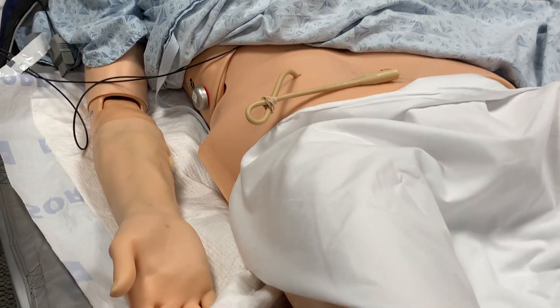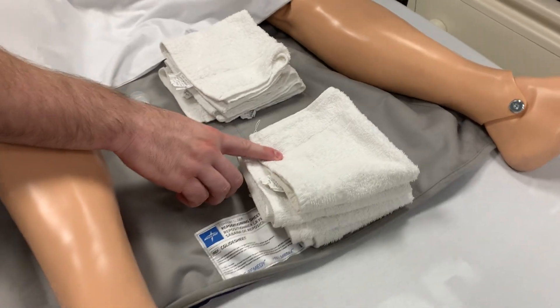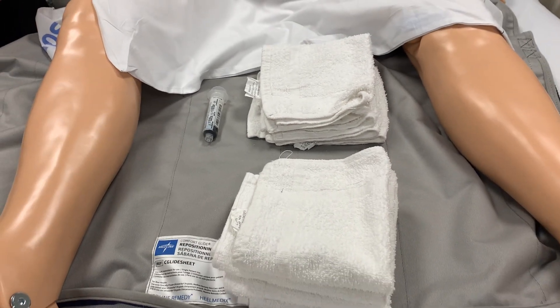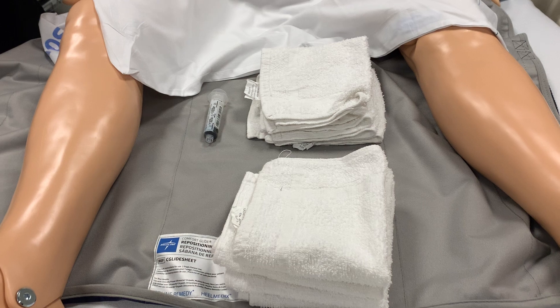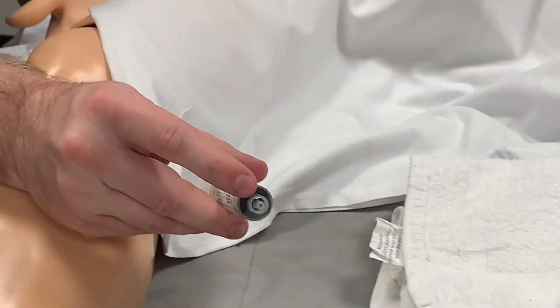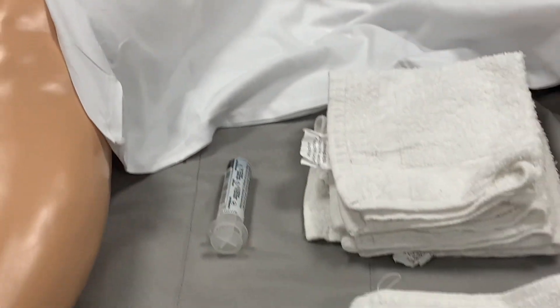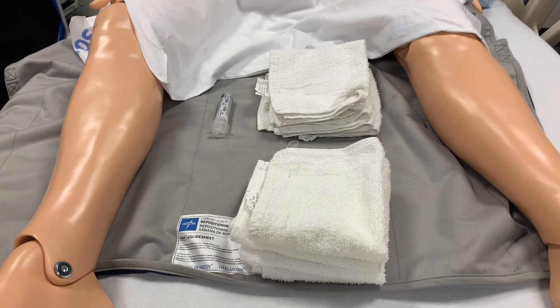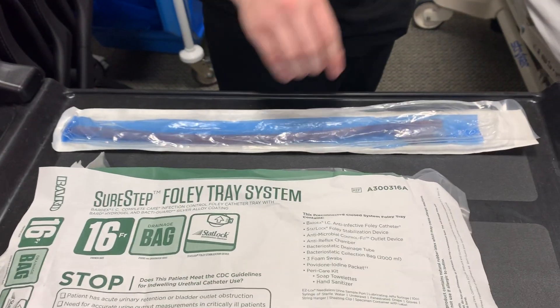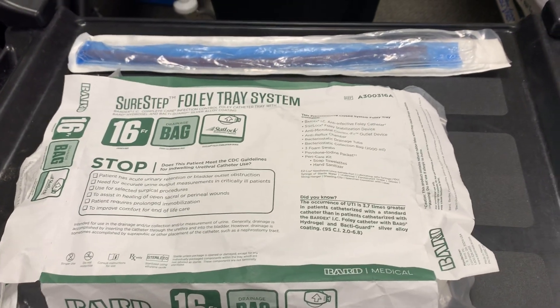To begin with, we need to get together our supplies. We will need washcloths with warm water and soap, and washcloths with just warm water. We will need hand hygiene supplies — whatever you need to wash your hands. We will need a 10 milliliter or 10cc luer lock syringe — that's a syringe with a screwing locking mechanism on the end. We will also need either a catheter change system with a catheter included, or a catheter change system without a catheter and whatever size catheter is appropriate for the person or was ordered by the physician.